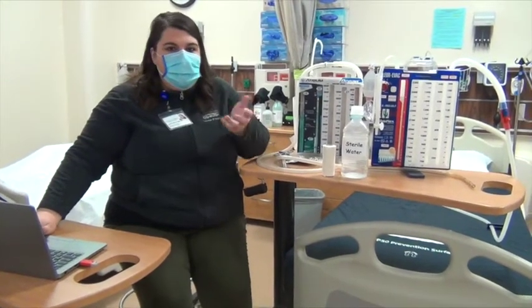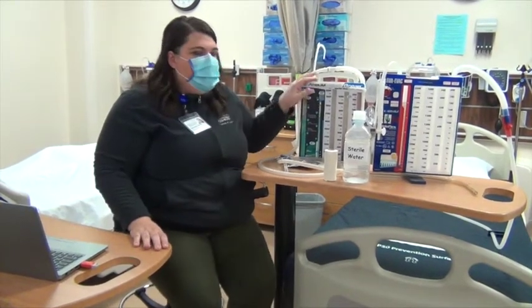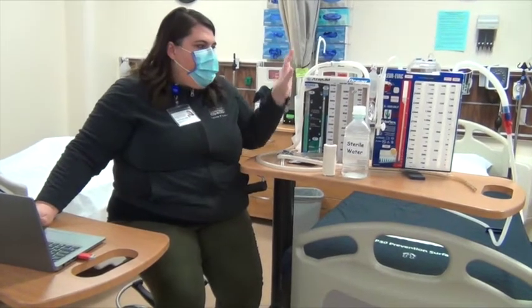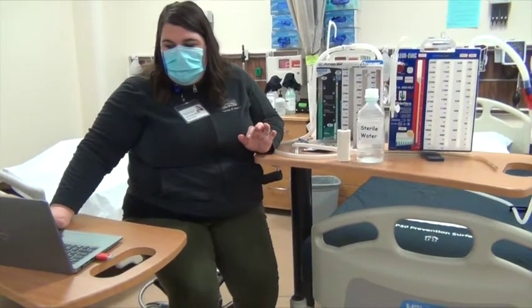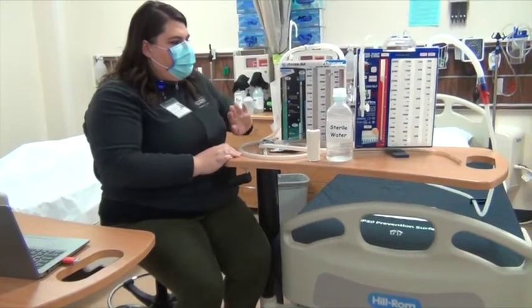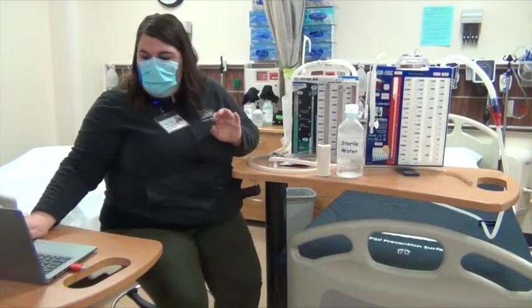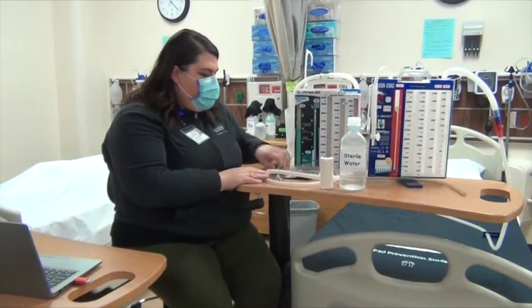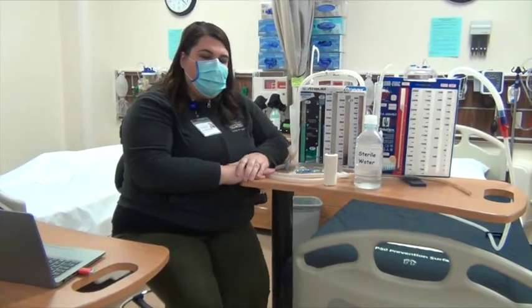And then, as you know, documentation, all of those things we would be documenting. We should have our eyeballs on this at least every 2 hours to make sure that everything is as it should be. So while there is a lot to check with this patient, if you kind of work your way from the patient down and then back up and just go through each chamber, you should be just fine. And then just remembering those troubleshooting pieces as well. So don't make it complicated. Review ATI, but that is chest tubes in a nutshell. That's it.